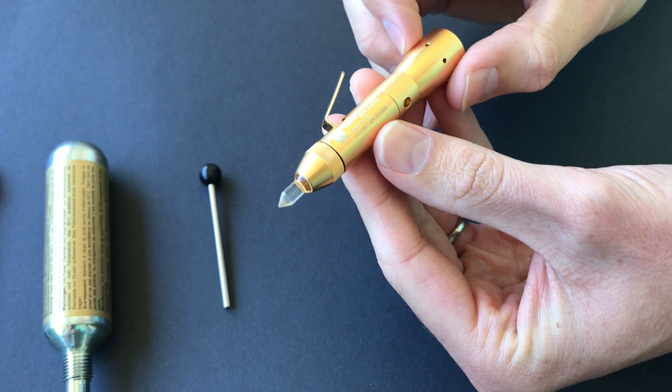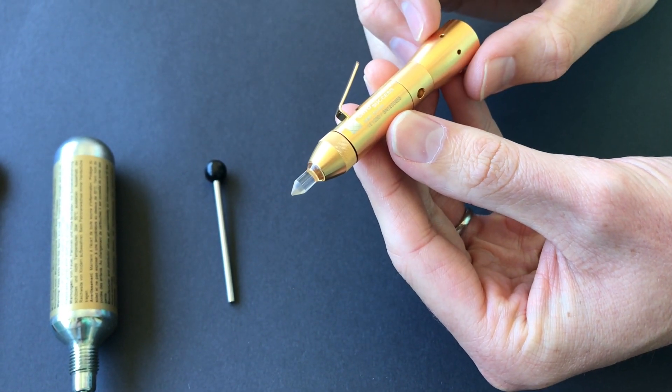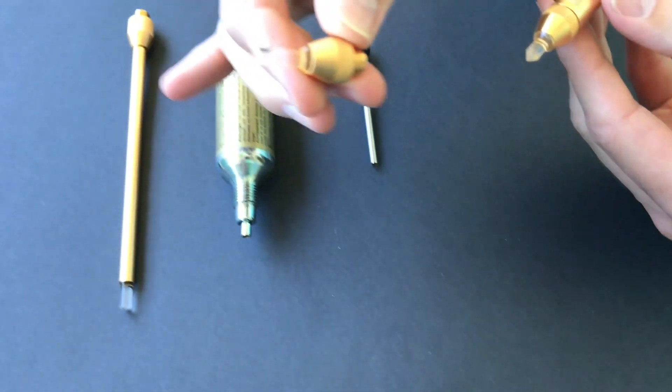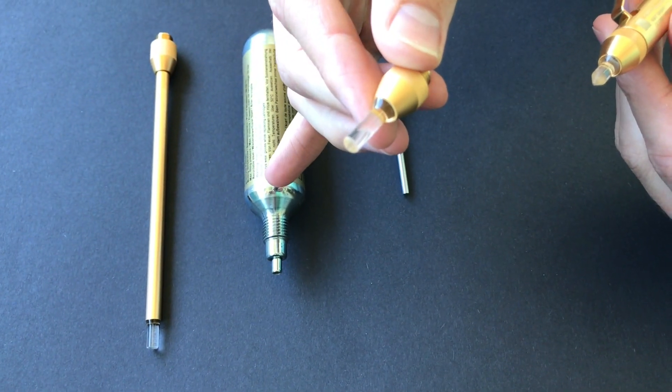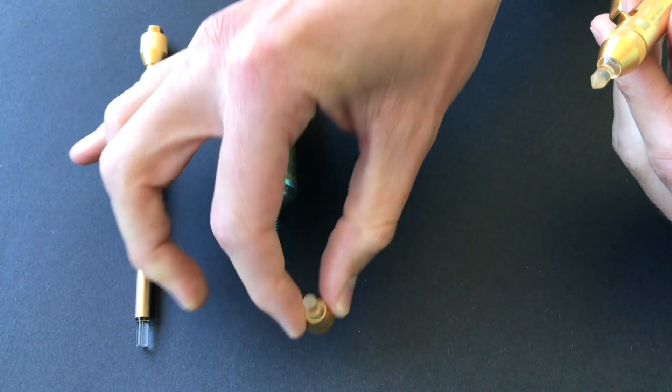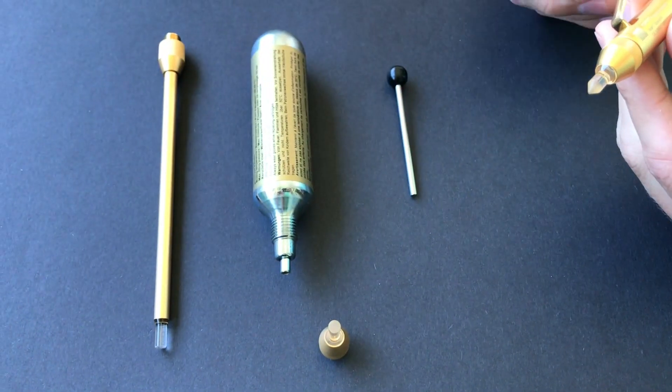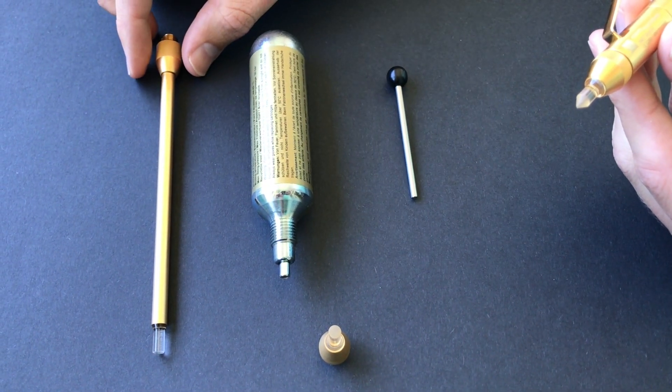Just to make mention that there is another size tip, which is a four millimeter tip for larger lesions if required.